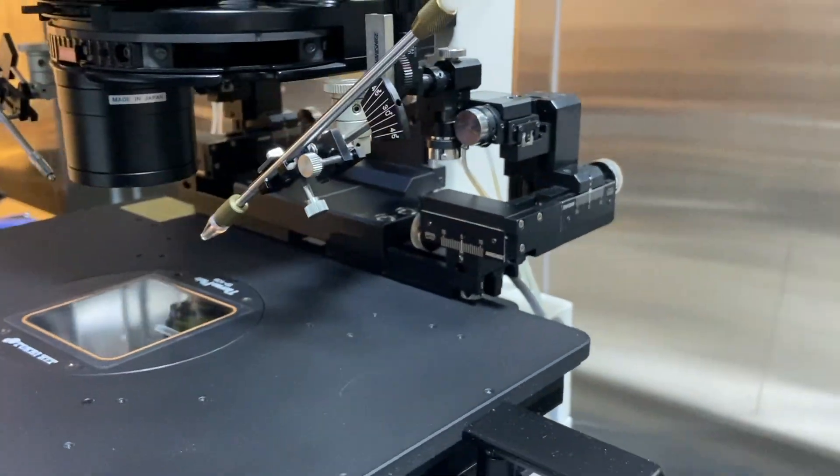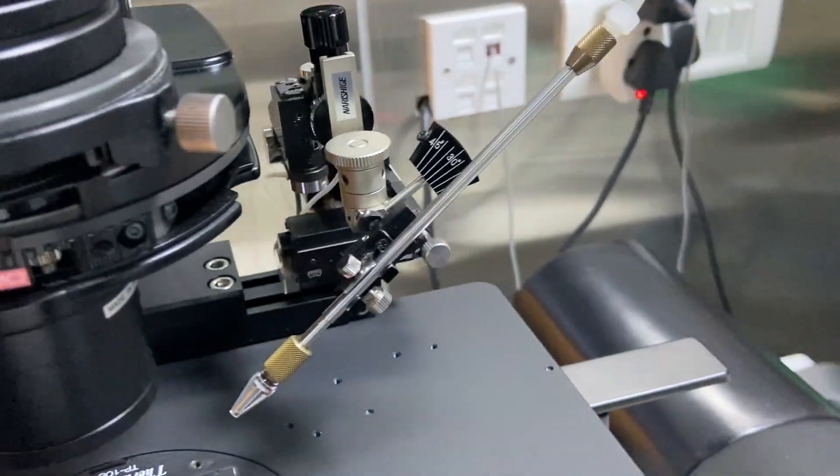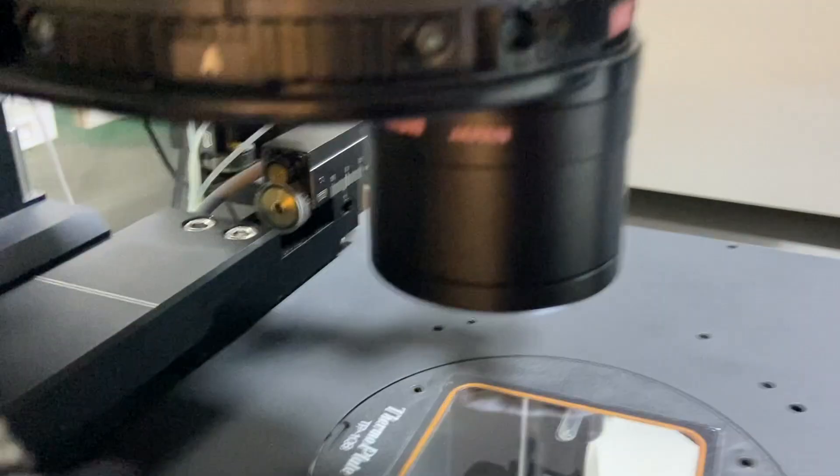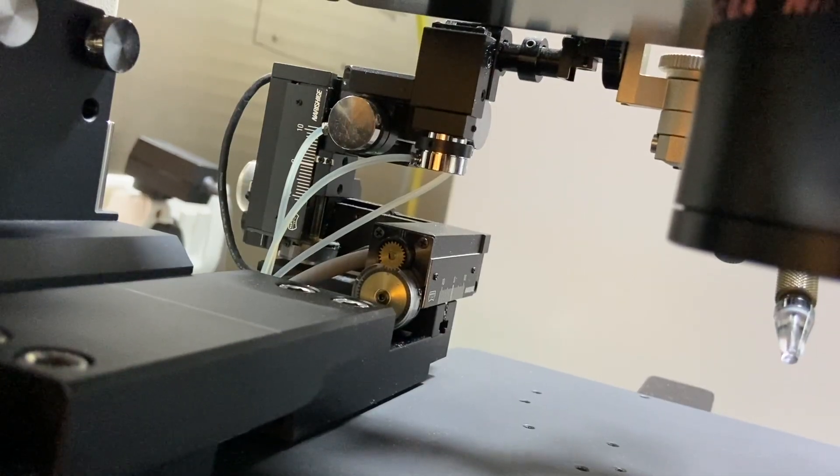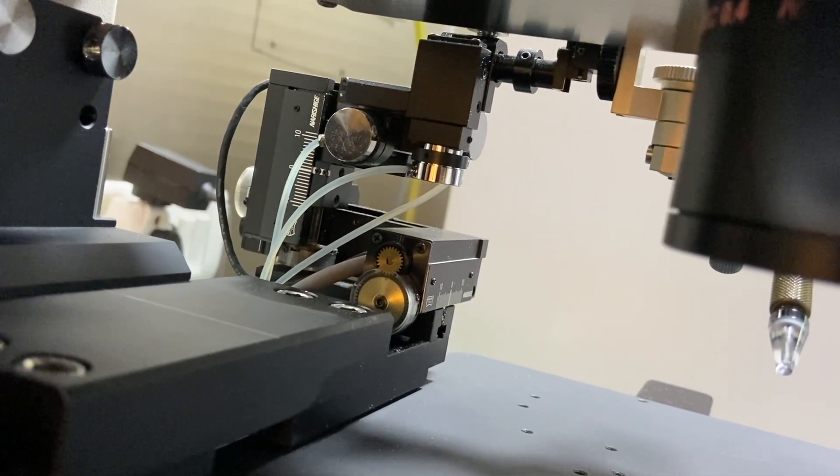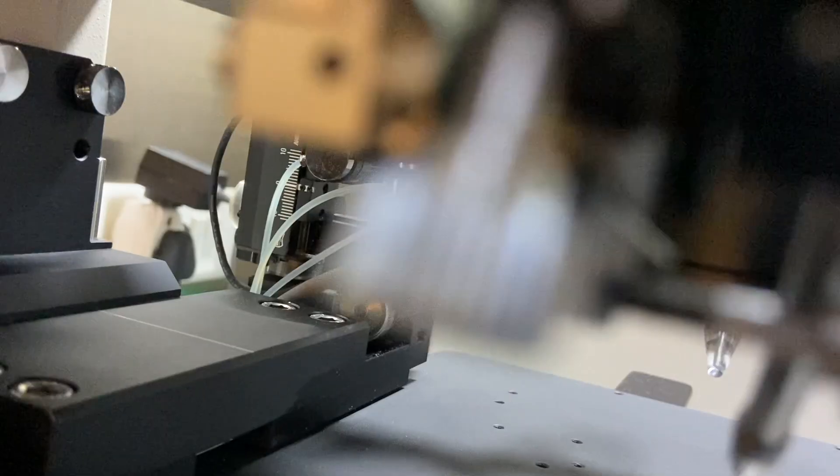Now we will go in the other direction and we will show you the other axis which is this Y axis. It is also little on the top so I will get it down towards the zero. Now this is all set.